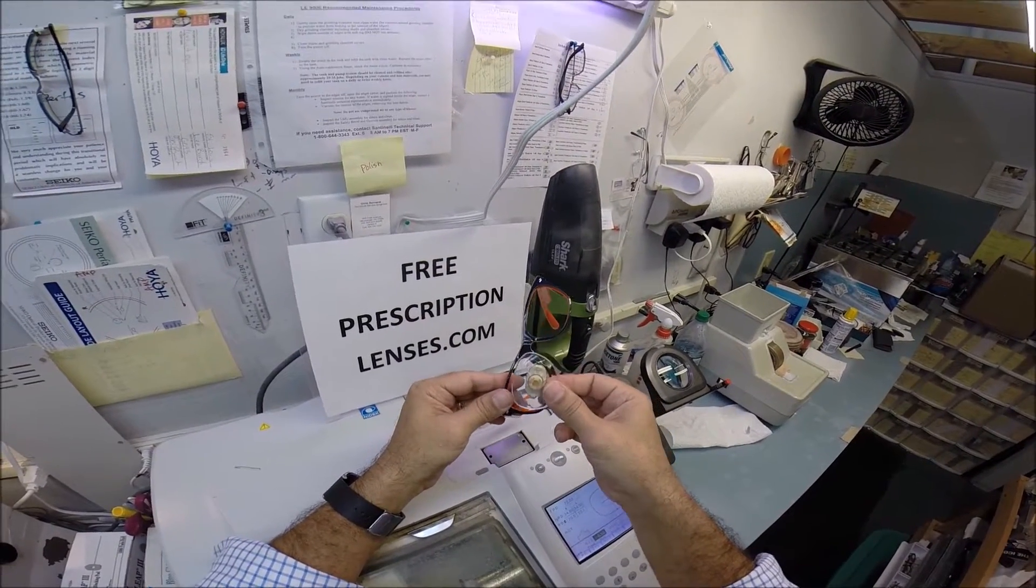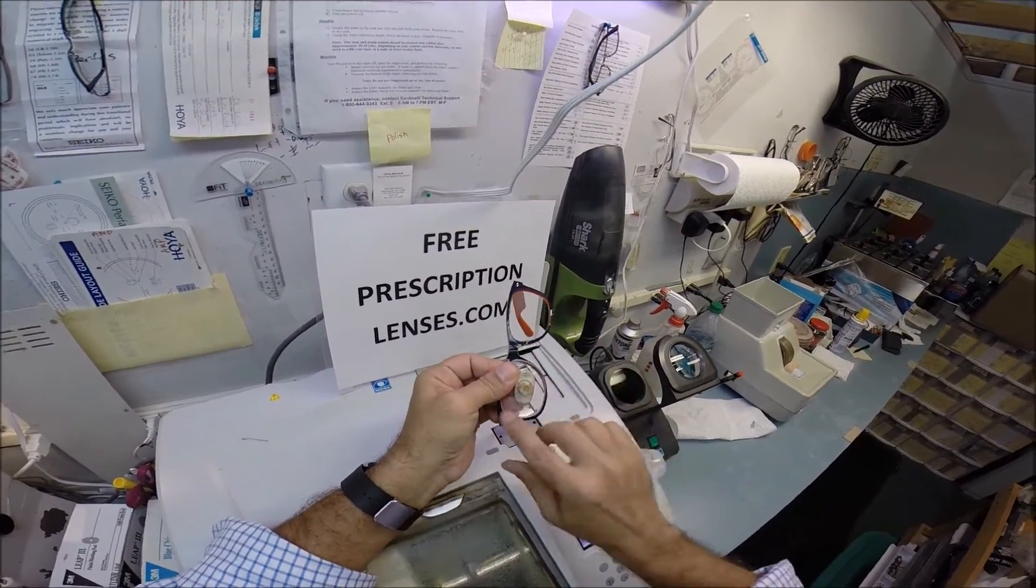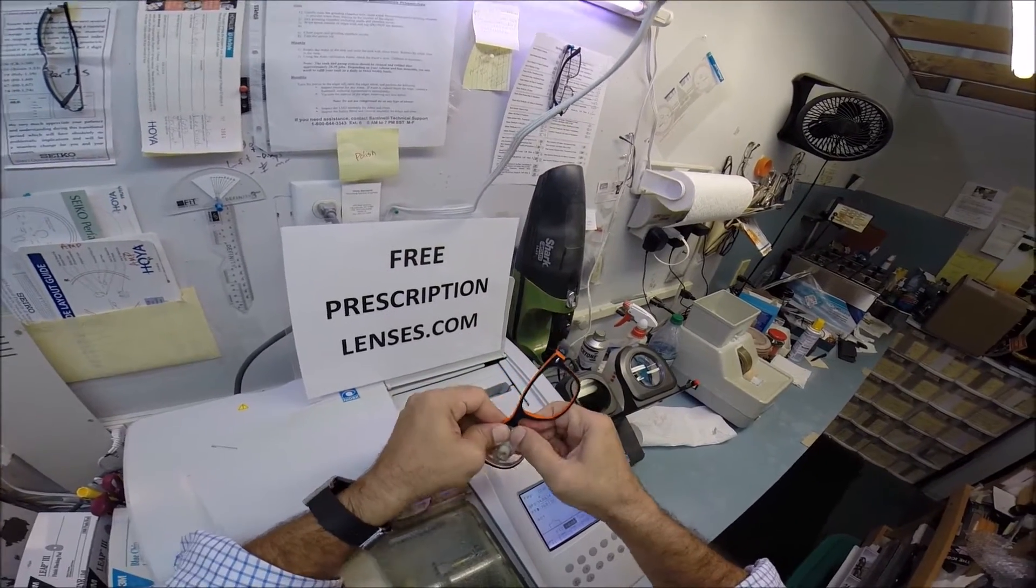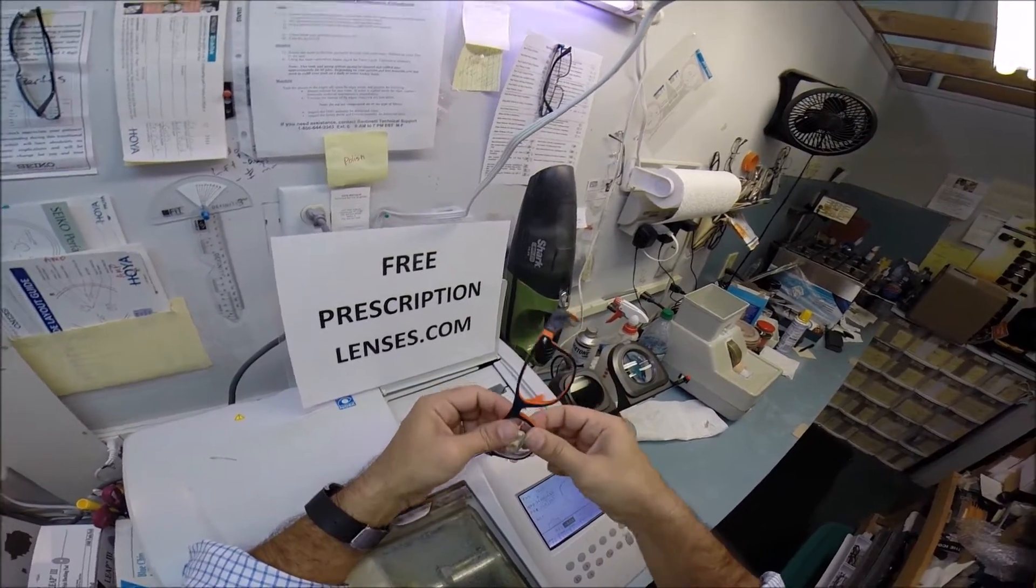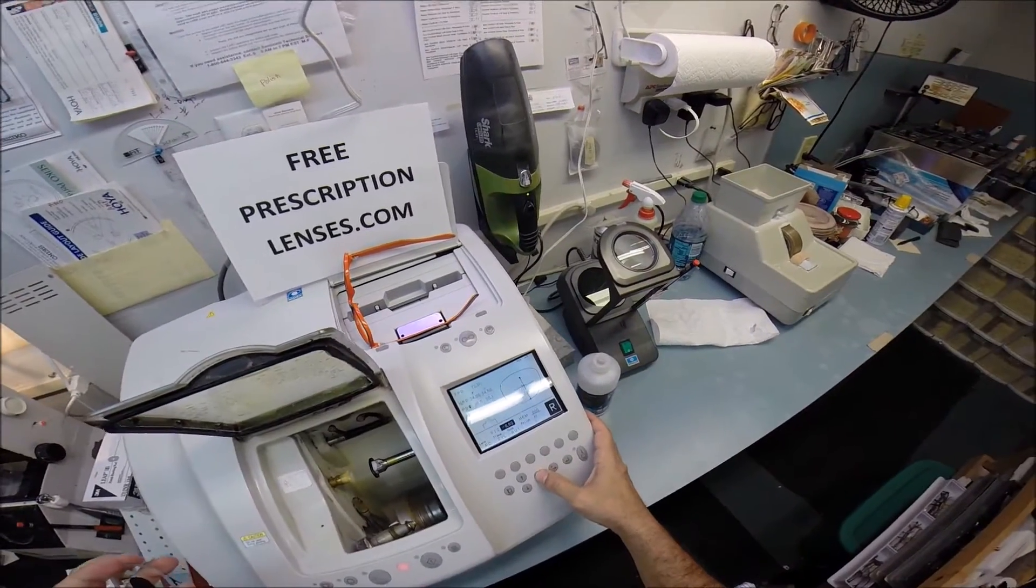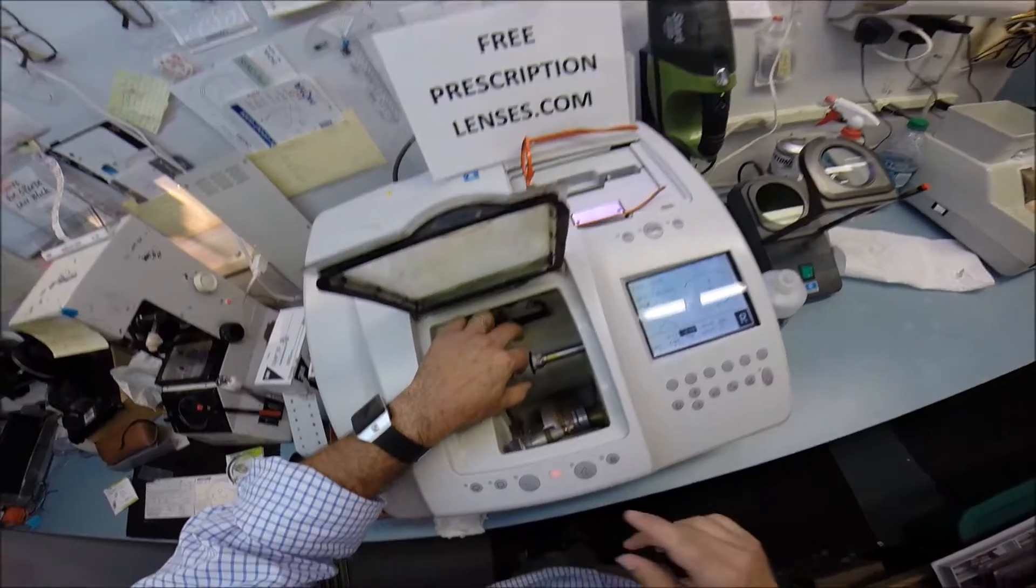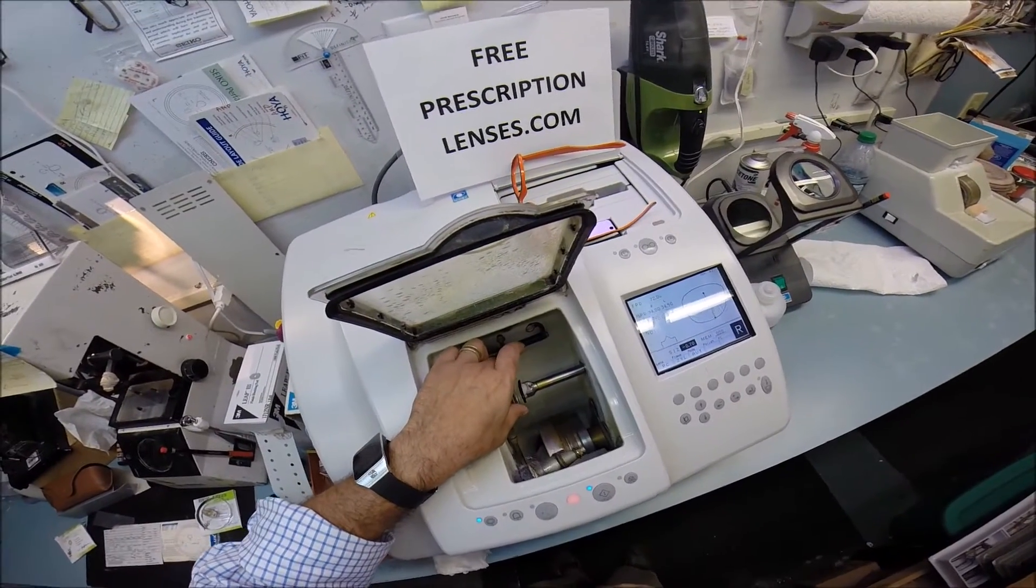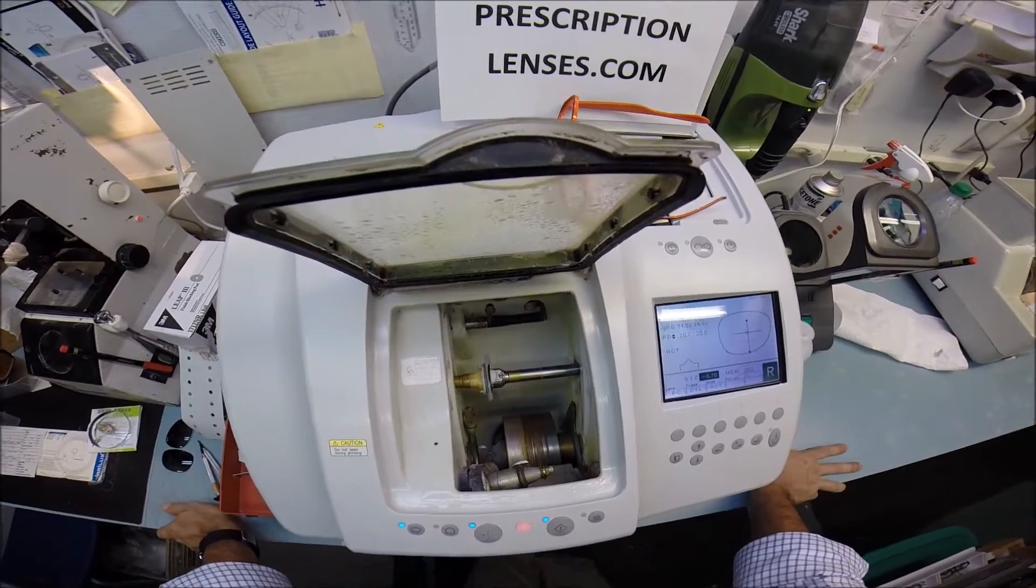So, let's go ahead and see if it fits into your frame. I'm going to tuck it in at the outside corner. And then using my thumbs, I press down at the nose. And actually, it does not pop in. It's still a little bit large. So, I want to take it down in size. The golden rule. You can always take more off of a lens. You can never add it back on there. So, I start a little bit large and work my way down.